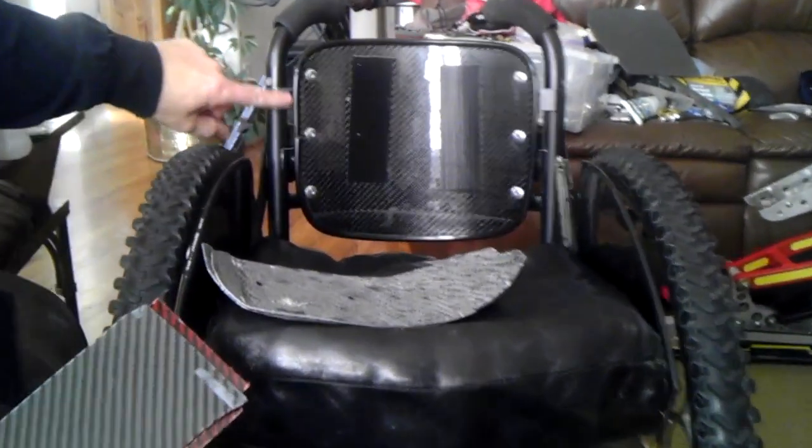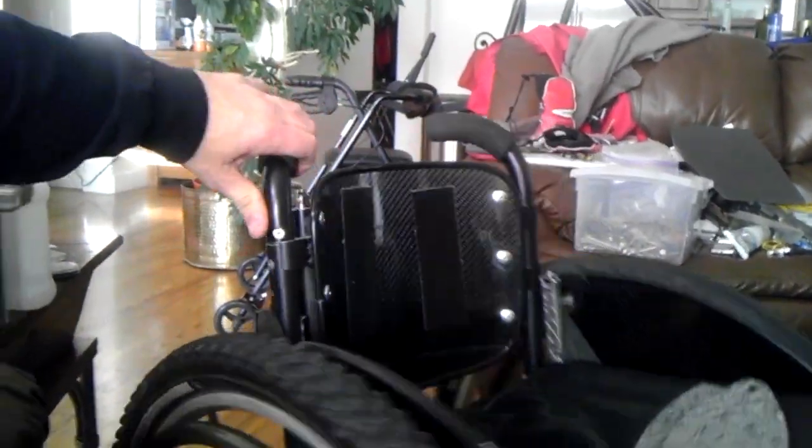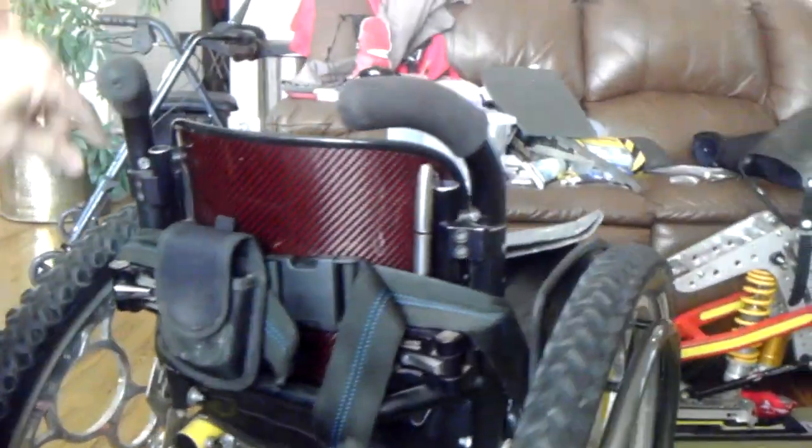It's clamped here by only one wheelchair clamp, three rivets, some washers, and an aluminum tube. The whole thing weighs one pound.